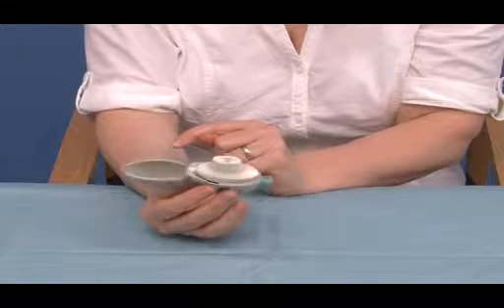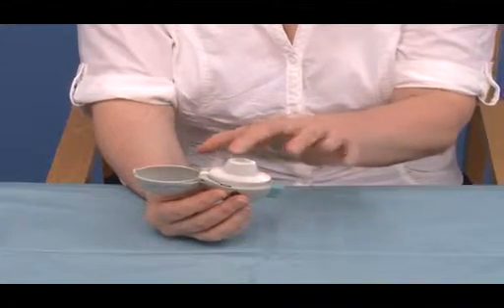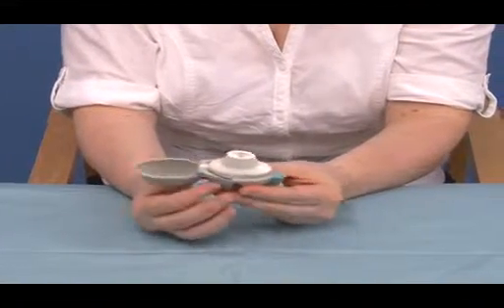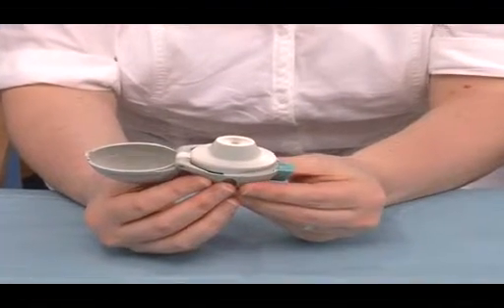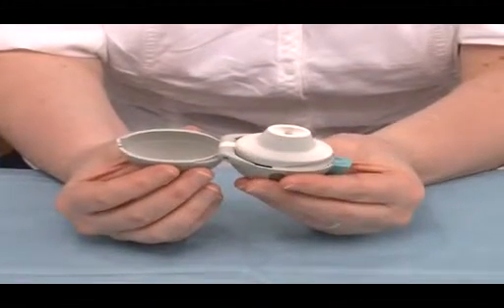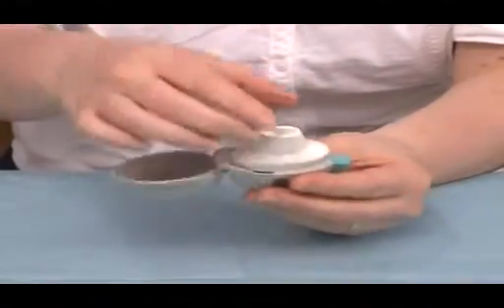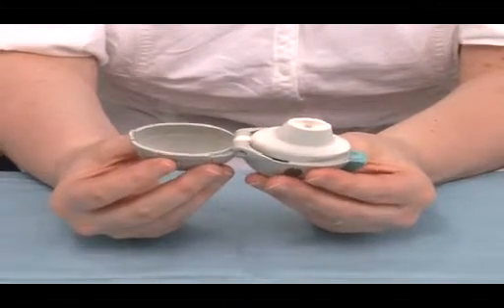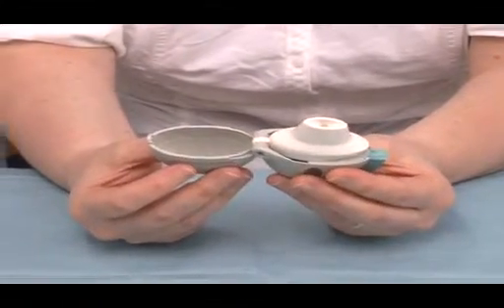And again, like the other dry powder inhaler, the patients would take a breath in, breathe out, sealing their lips round there, and take a breath in. With the Handihaler, particularly with people with chronic lung conditions, they may require to take 2 or 3 breaths in, and this is fine. And often when patients are first starting with the inhaler, they will learn to take the capsule out, pull it apart and check if there's any medication left in this. Usually after a couple of days of using the inhaler, they don't require to do this, but it is a check for themselves.